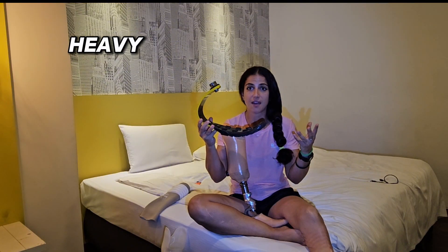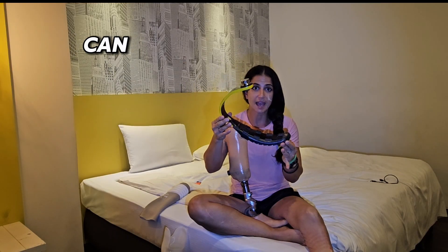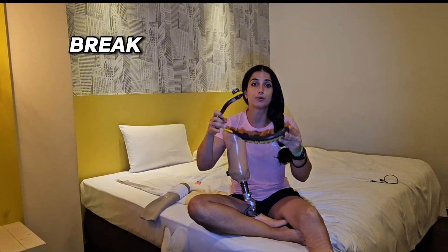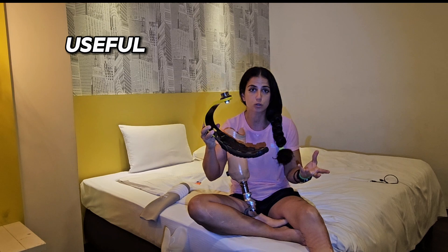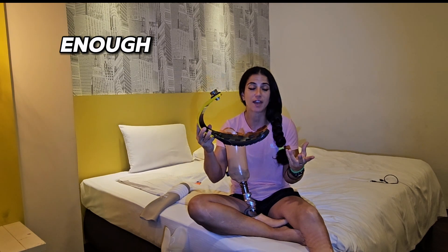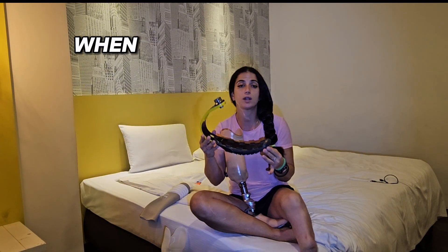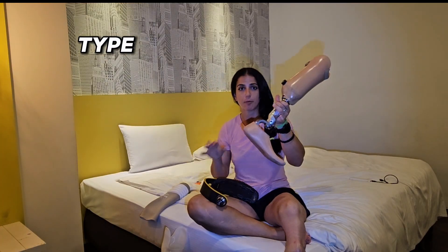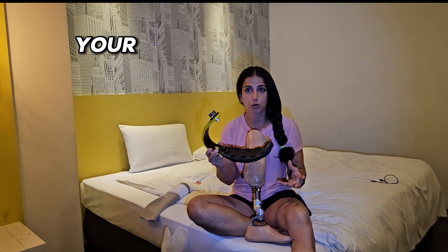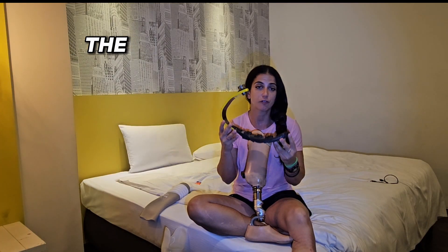So if somebody uses it and they are 5 to 10 kilos heavier than this foot can absorb, it will break — it will literally break — and it won't give you enough energy back. These feet are designed around your weight, so be aware of that. When you order a foot like this with your prosthetist, you really need to be precise with your weight.